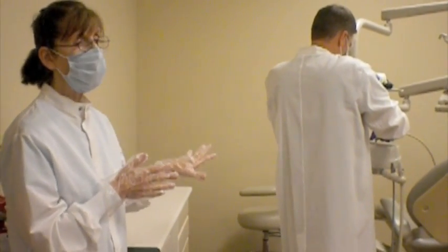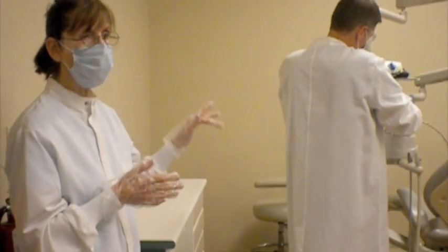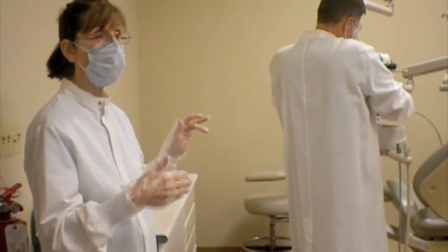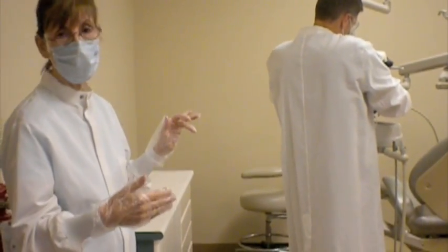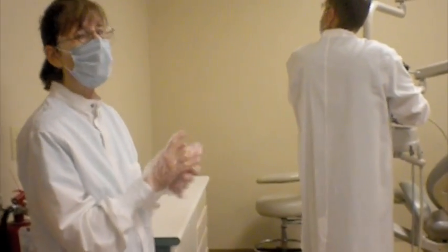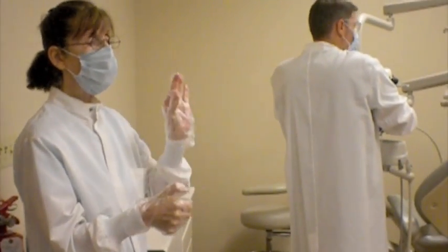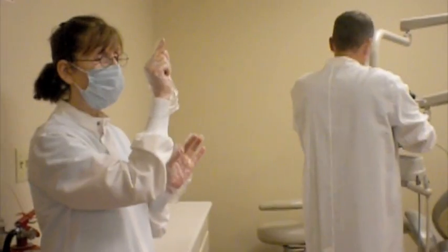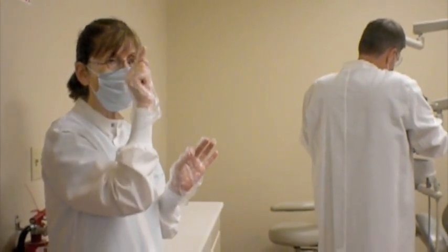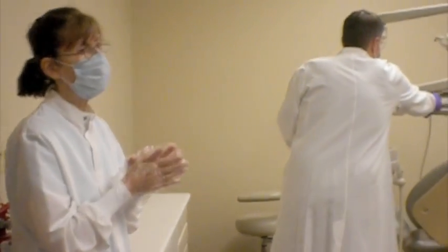So 2 minutes with the actual depressing, and you can see that you have to continuously depress the buttons in order to get the water to flow. Some of the buttons will run a little bit longer at the units than others. You'll learn how your unit actually operates and how frequently you're going to have to continue to repress those particular buttons. The air water syringe button, you'll see on the top there is one button that has a little water droplet above it, and then there is another that has a little cloud, looks like air, above it. One is for air, the other is for water, so you'll press the one with the droplet.